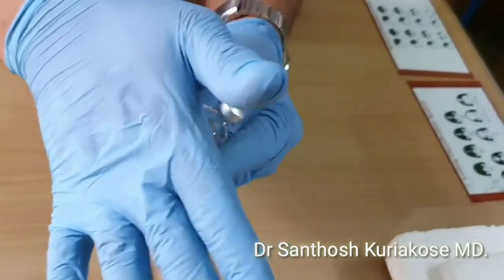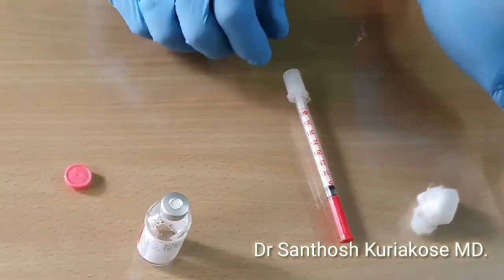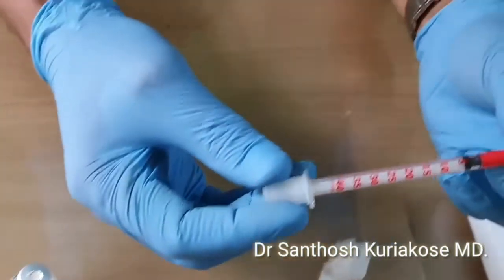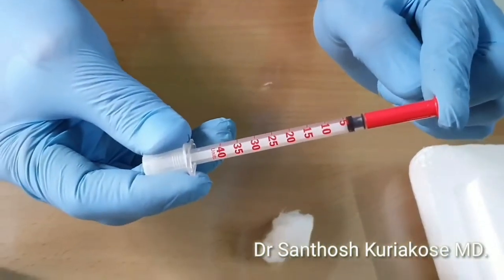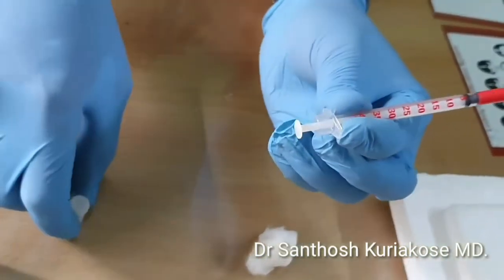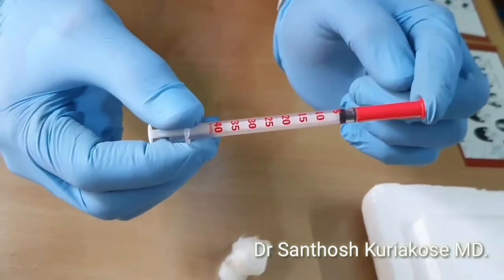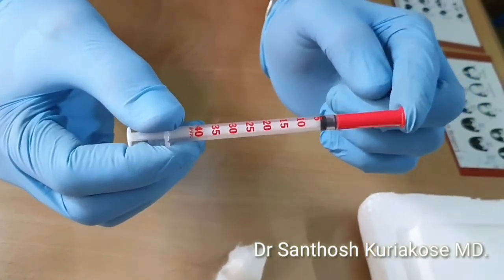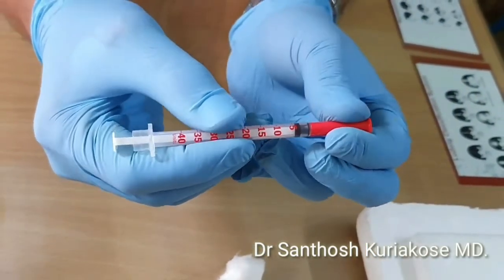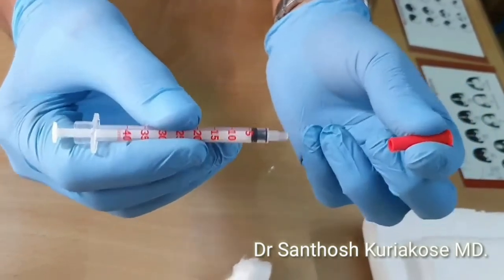Now take the syringe. The syringe has got a red cap and a white cap for the piston. The insulin syringe has a red cap to make sure it has been sterilized and kept sterile. Once it is open, it is ready for use. That means you have to throw it after use by closing the cap.